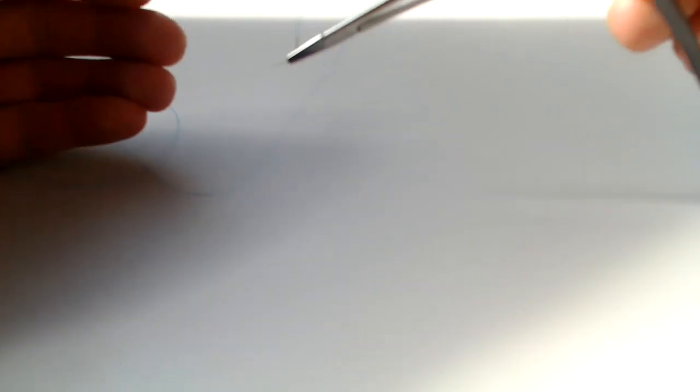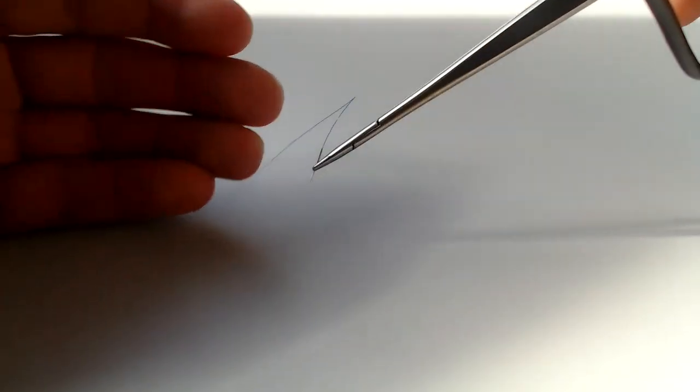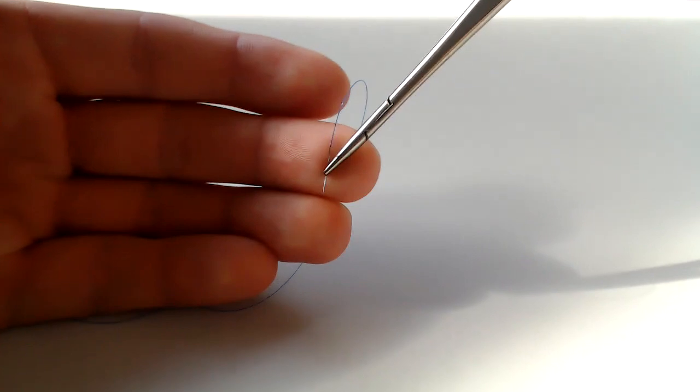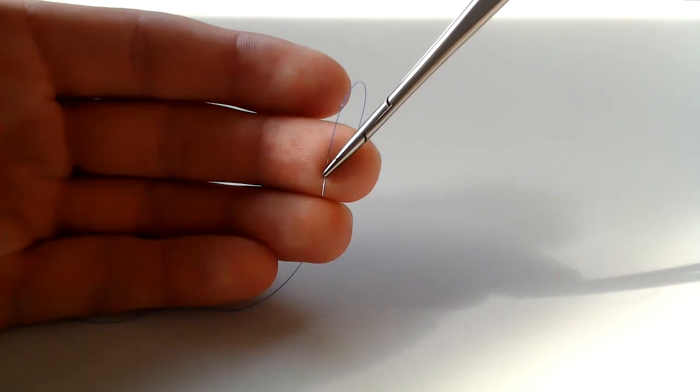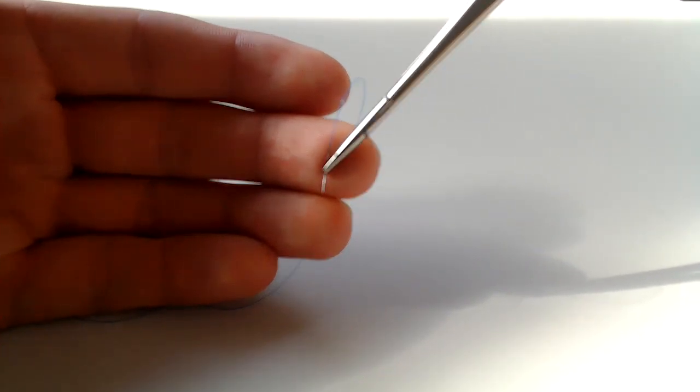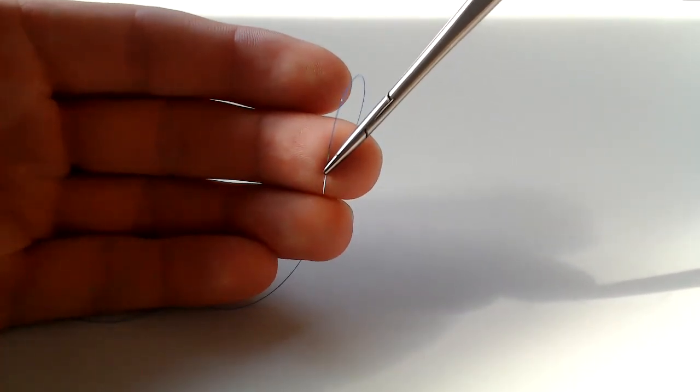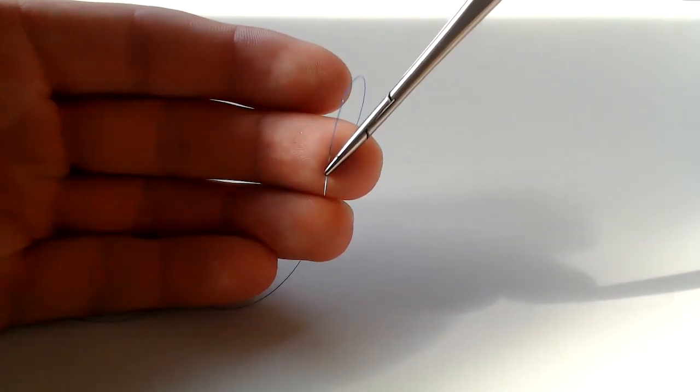Another thing that's basic, and hopefully by now you do know this, but always loading it up at the end of the needle drivers. One of my former partners, Dr. Hussam Yunus, referred to this as the capital T. You do want a capital T. You don't want a lowercase t.